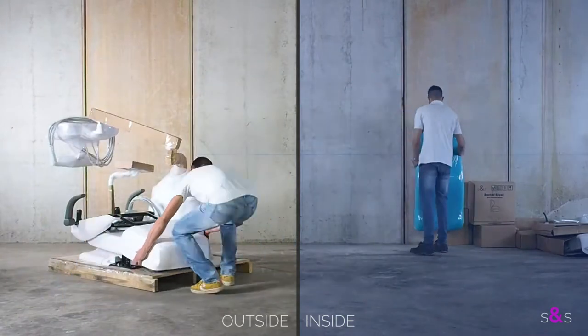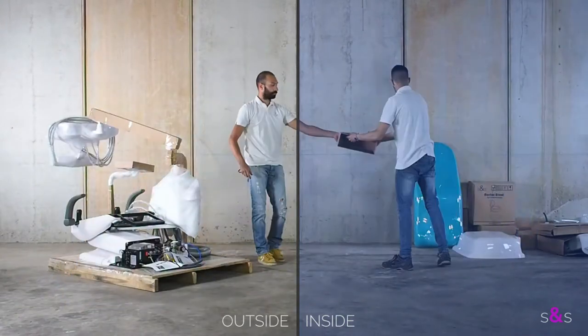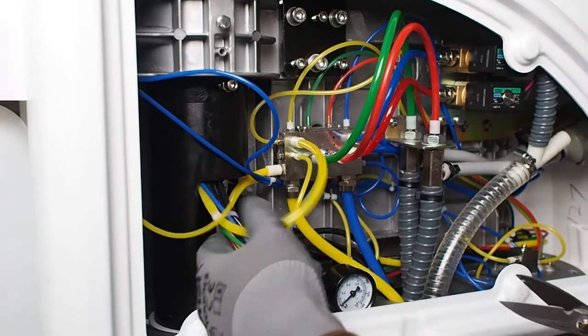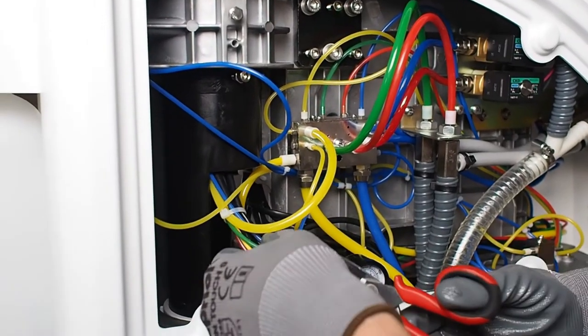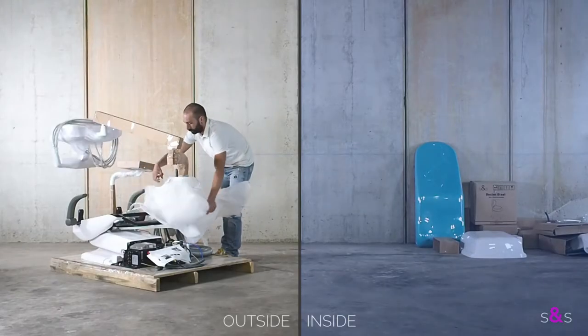To simplify the handling through doors and different floors, it is important to disconnect the whole instrument tray starting from its connections inside the water unit. Remove the water unit covers and bring them inside.